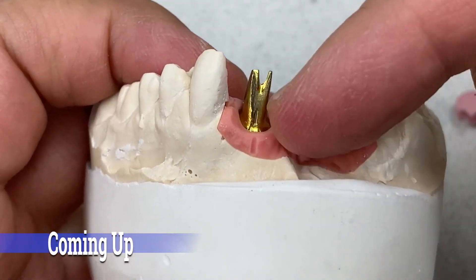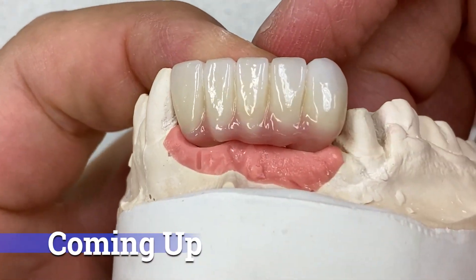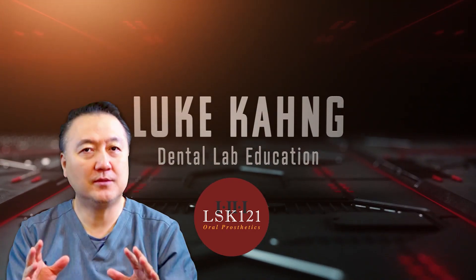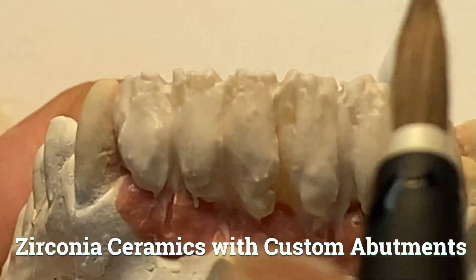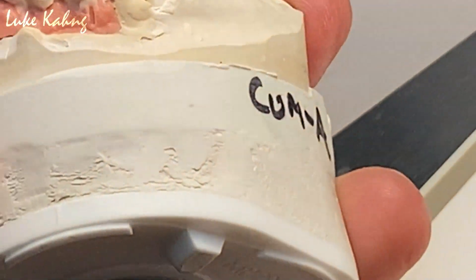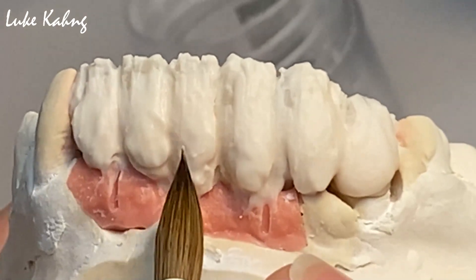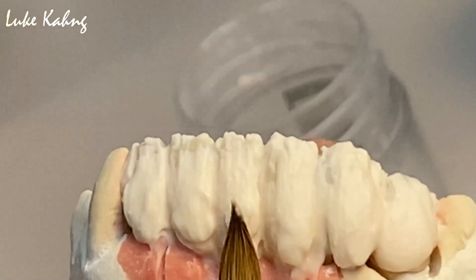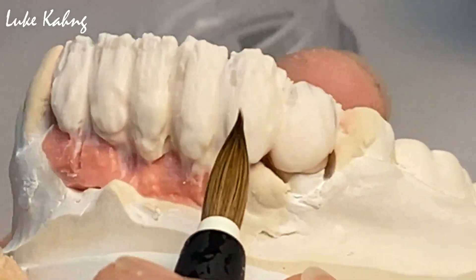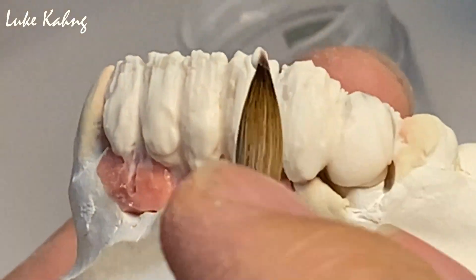Before they put it in there, they have to cut the tissue. That's the final product. This is the first dentin buildup with an implant. I'm going to make the same height of contour — cutting in between the teeth to make it more individual looking. Not much room here because it's an implant site, so there will be some pink porcelain. After I cut it at the first bake, I decide it.